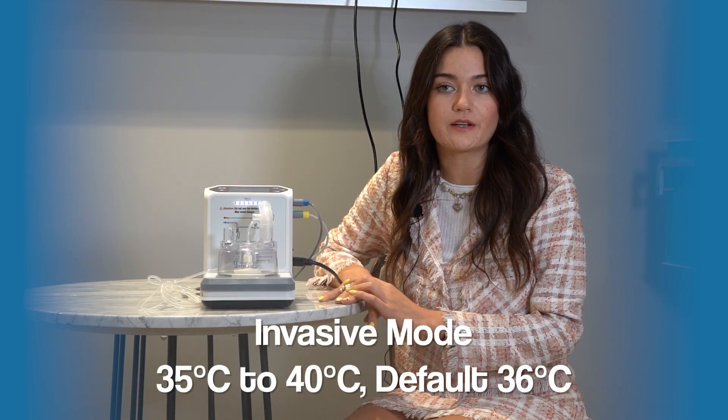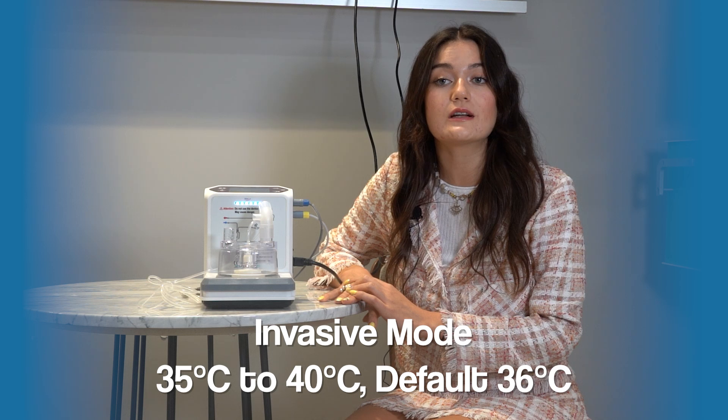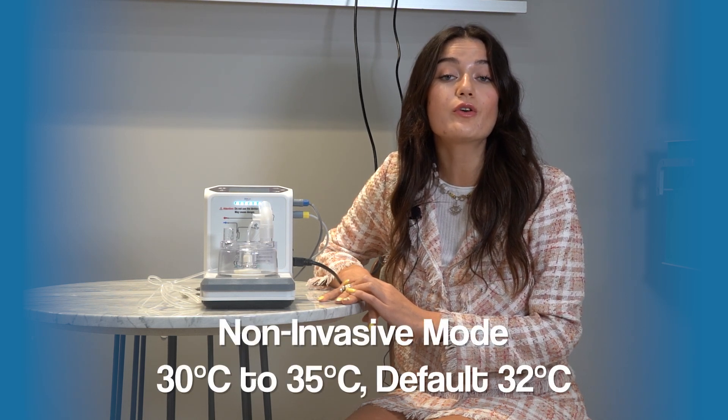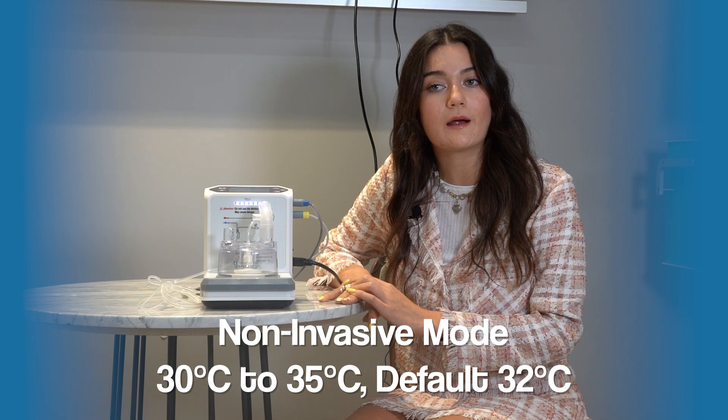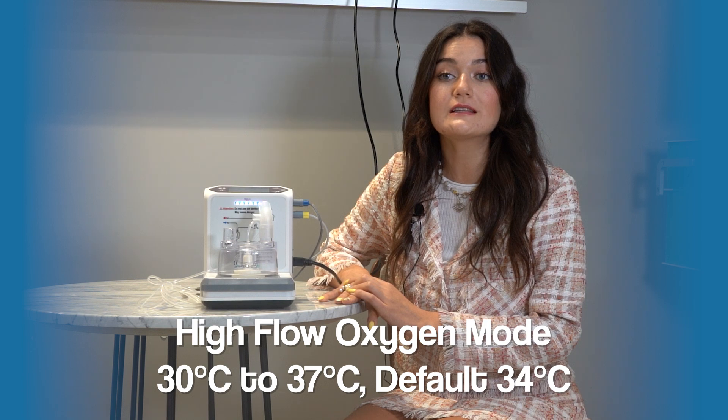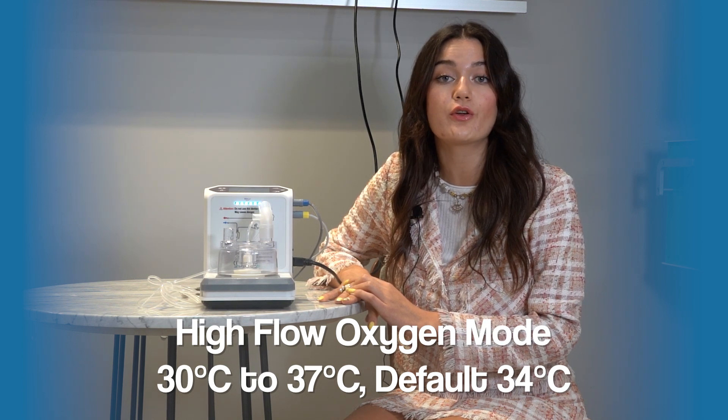Each mode has a specific temperature range and default temperatures. Invasive mode: 35 to 40 degrees, default is 36 degrees. Non-invasive mode: 30 to 35 degrees, default temperature being 32 degrees. High-flow oxygen mode: 30 to 37 degrees, default being 34 degrees. Another competitive feature of this product is its integrated nebulizer input.